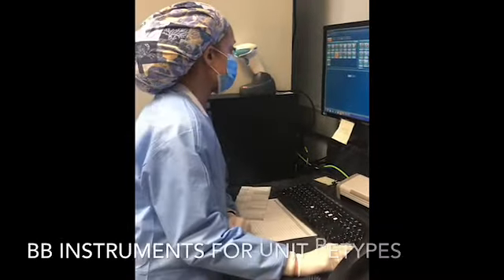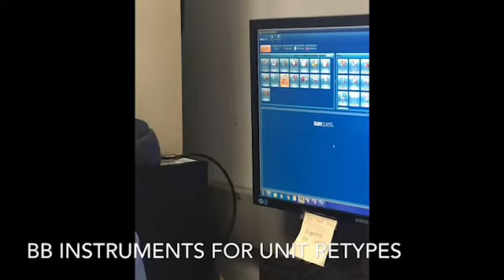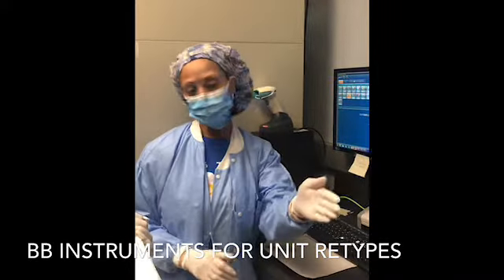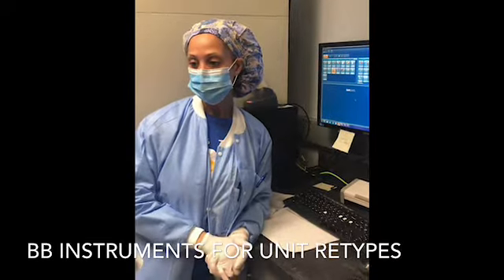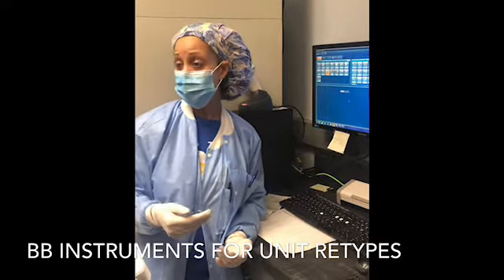BB instruments. So BB instruments will be for units. Okay, you will still put the units on as you would normally do if you get them in. So you'll take two segments, put them in a 12 by 75 tube, put the big unit label on it. You'll go ahead and put them on the Vision. And then you'll batch test them. Okay, so you'll just press the batch button on there. And you'll select all of the units.